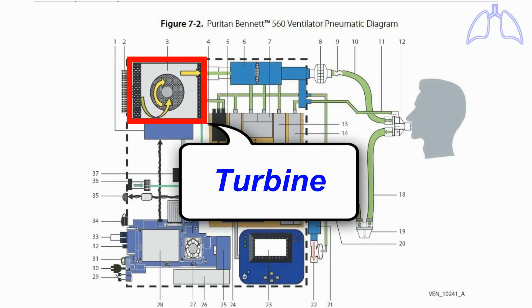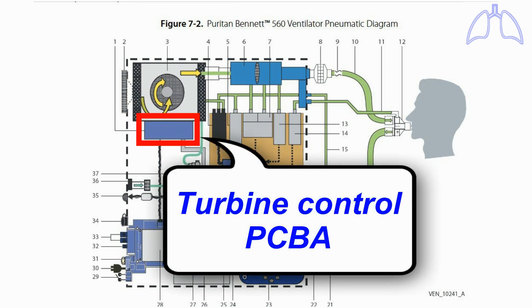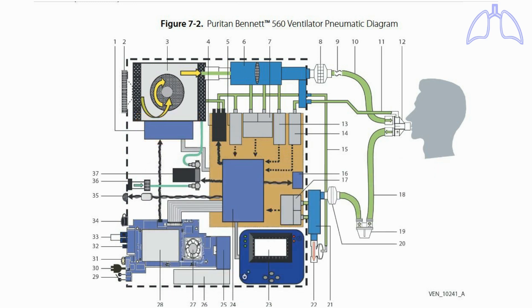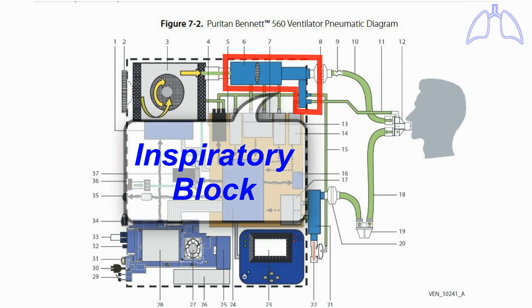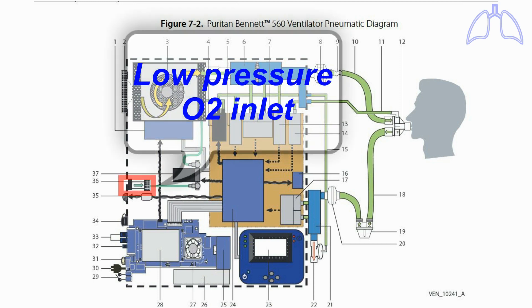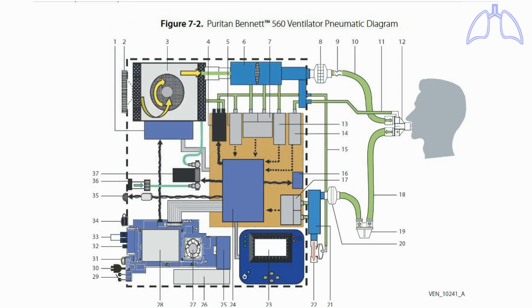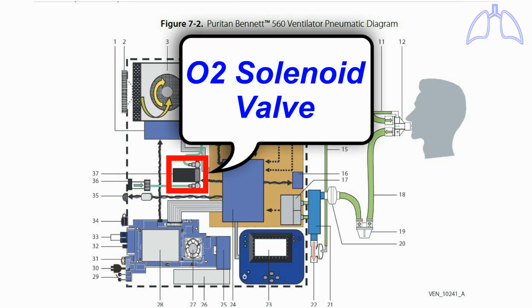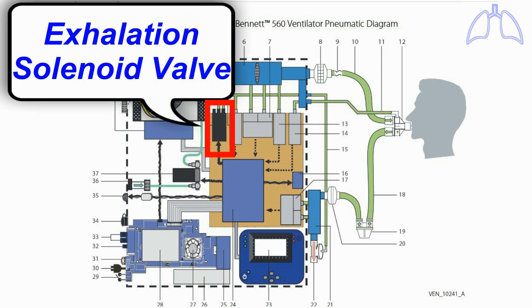Turbine. Air inlet filter. Turbine control PCBA. Inspiratory block. Low-pressure O2 inlet. O2 solenoid valve. Exhalation solenoid valve.